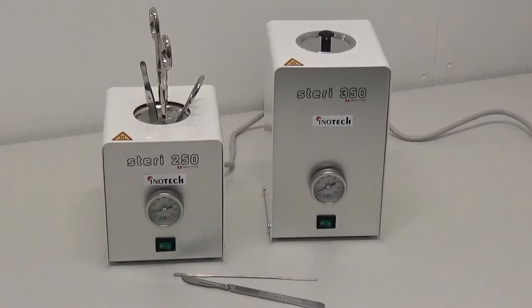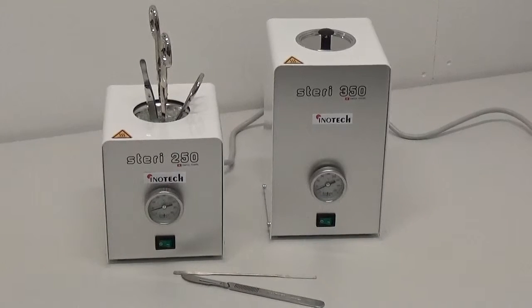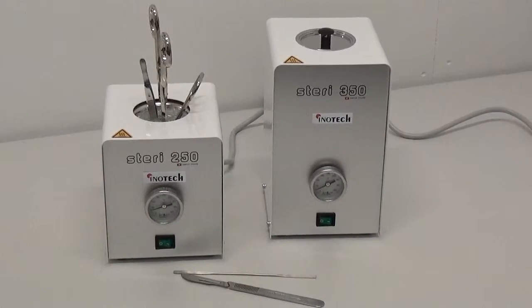Steri is the name of InnoTech's hot glass bead sterilizer. It sterilizes instantly small laboratory instruments.